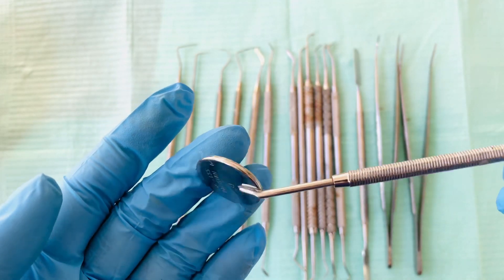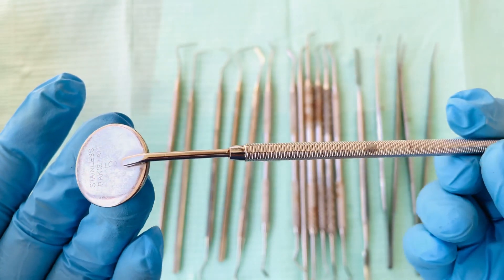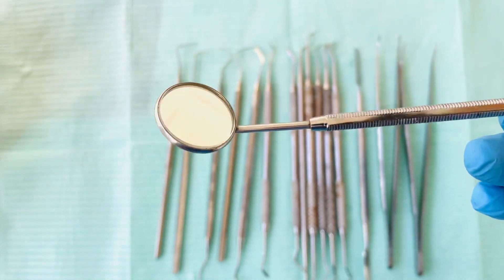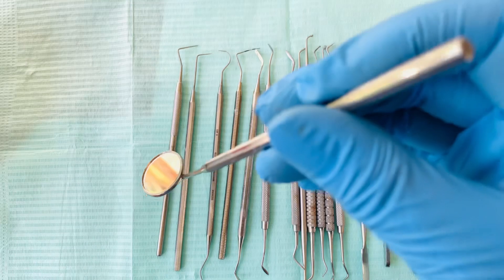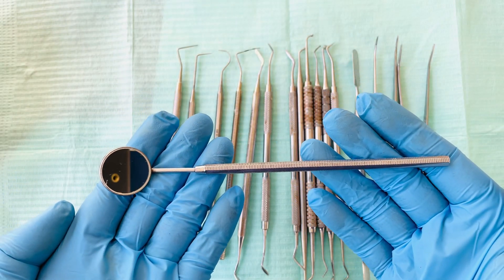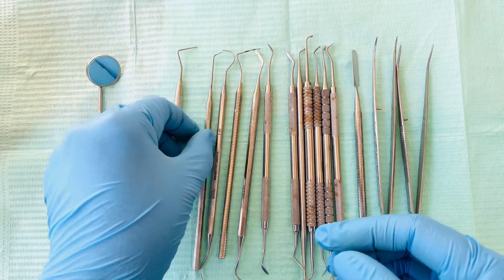It's also used around inside the oral cavity, and it's also used to retract the lips and to retract the cheeks. So this is how a mouth mirror looks like.